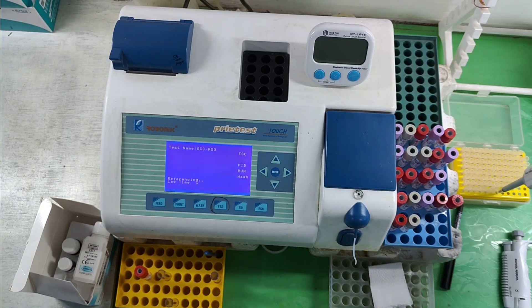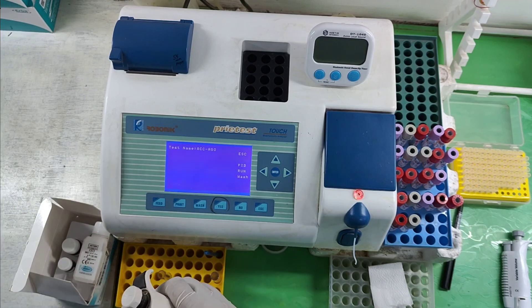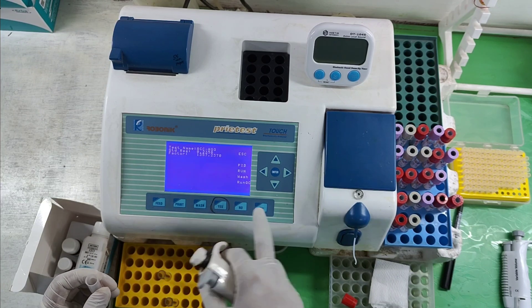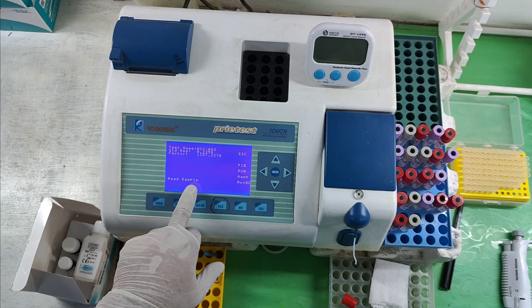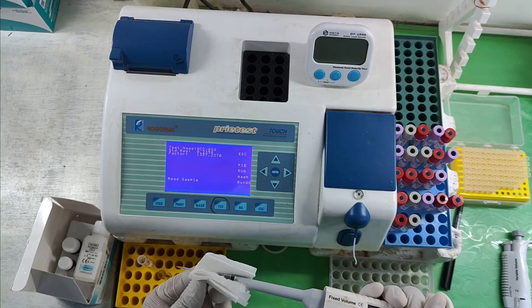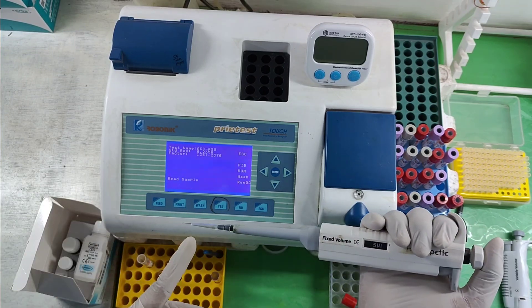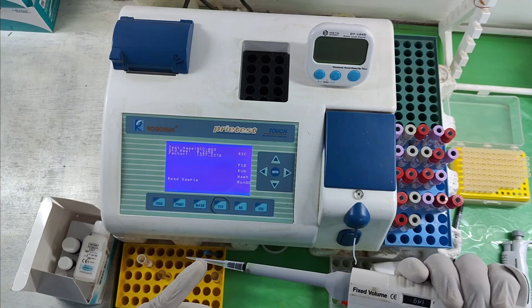At that time I have to ready the pipette with 5 microlitres for collecting the serum sample. For 'use towards standard,' I press yes because I have calibrated this program. The machine is now in ready condition and reads the sample as 5 microlitres. Put a tissue and wash the outside of the tip gently, then mix the 5 microlitres of serum sample into the working reagent instantly and read instantly, as it is a kinetic method.